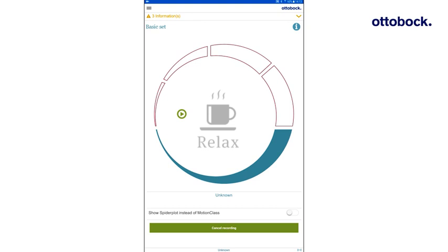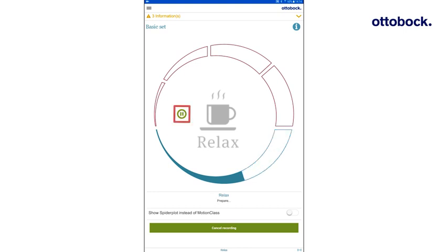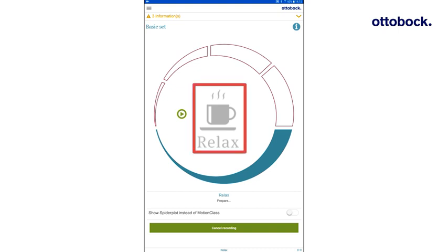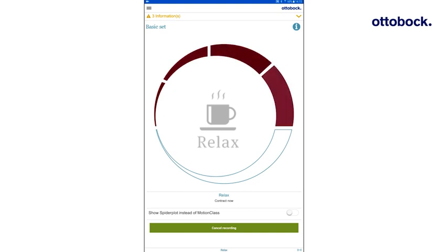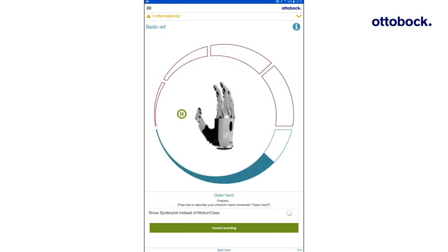The blue bar shows the expiring pause time. During this phase, the muscles must relax and the user must prepare for the upcoming movement shown in the image. Start the recording by pressing the play icon. If the user needs more preparation time, the recording can be paused and continued with the green play button. The electrode signals are recorded during the red phase. In the first red phase, when the relaxed symbol is shown, the user must keep the muscles relaxed, so that the resting EMG in the given arm position is recorded.